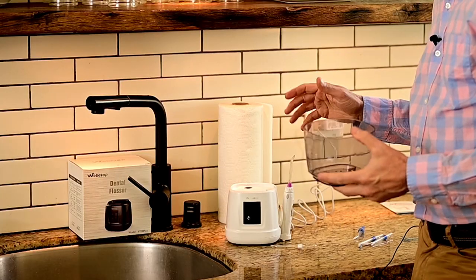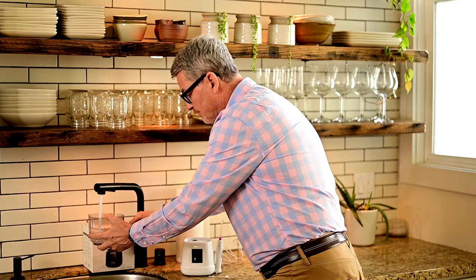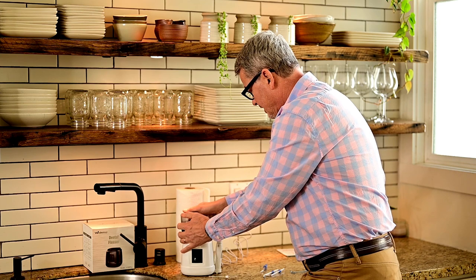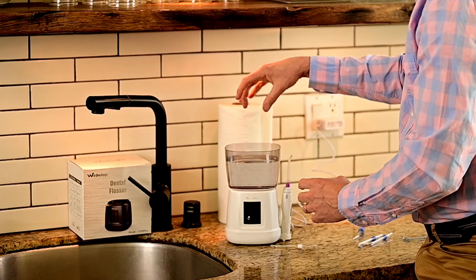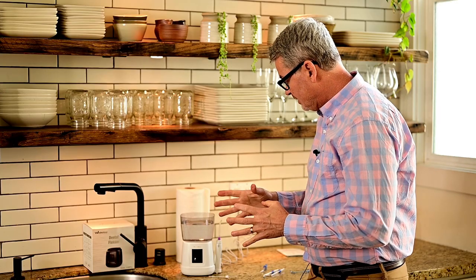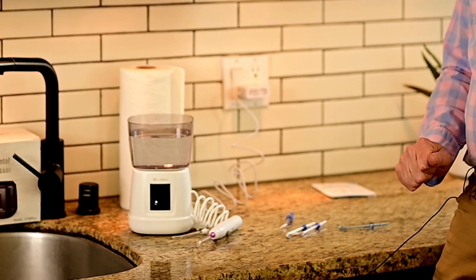We're going to load this thing up. I'm curious to see how it works compared to its main competitor, the Waterpik. Everything's very similar. I'm not using distilled water but this should suffice. A full tub gives you about three minutes of water flossing — or water picking, as it's called. You have to place the tank correctly because there's a little grommet, a little gasket — make sure it's fully seated. There is no cover for this, so if you leave it loaded with water it may get contaminated. If you leave it at counter level like this, it can leak — that's why they have this little holder here.